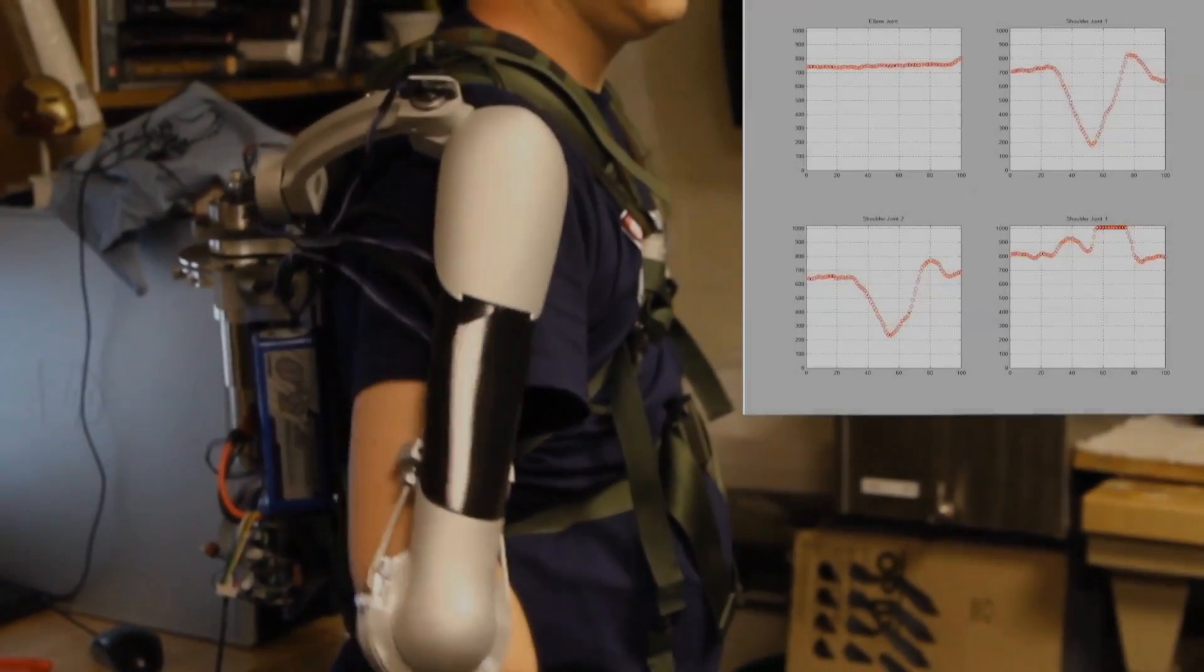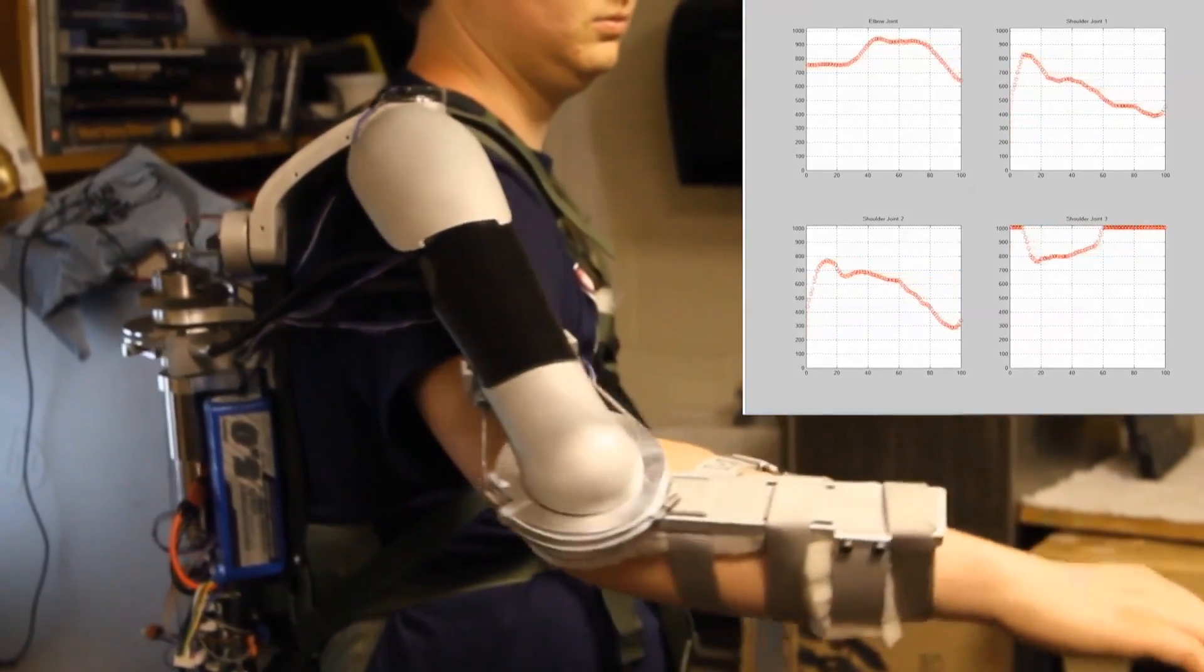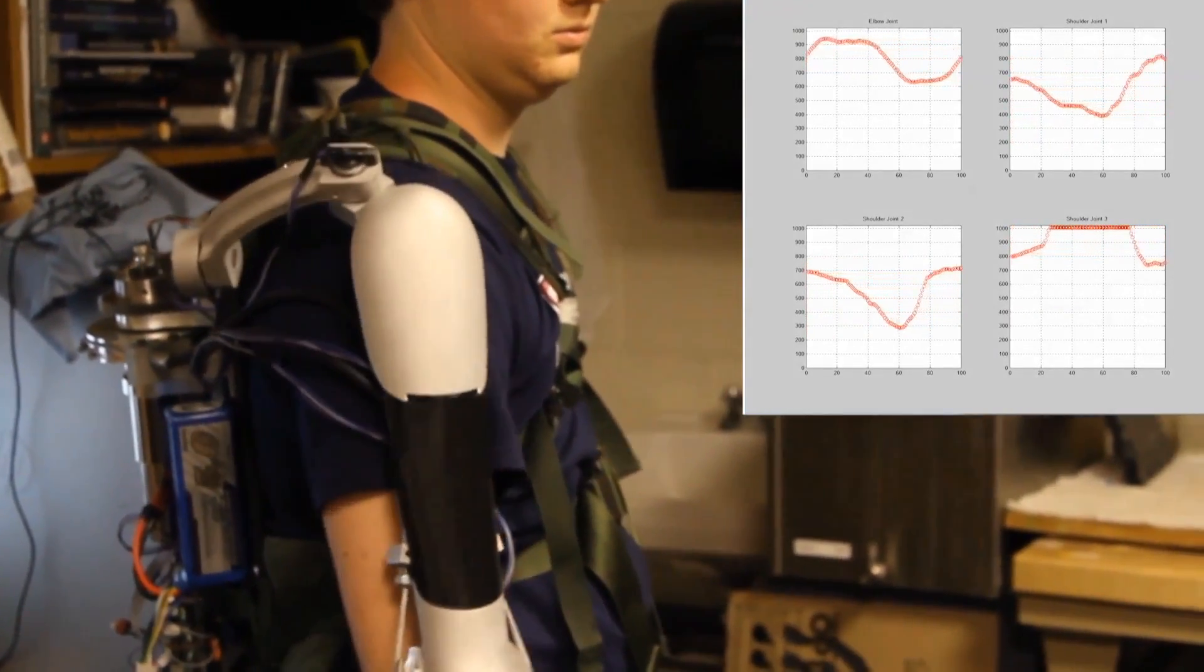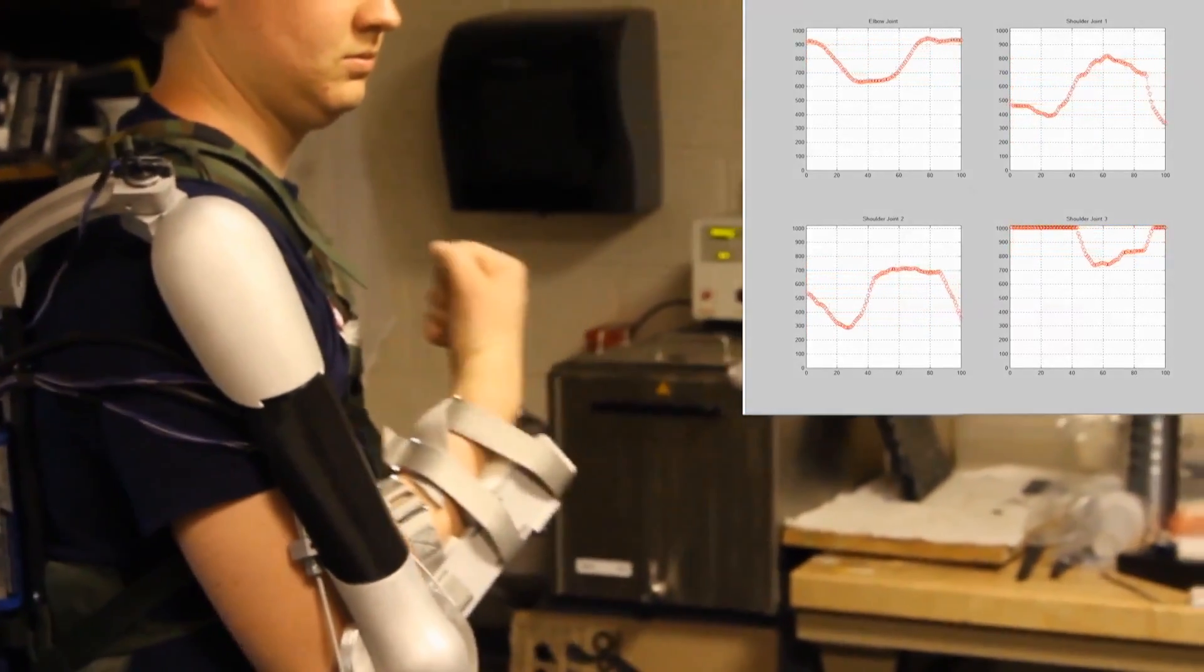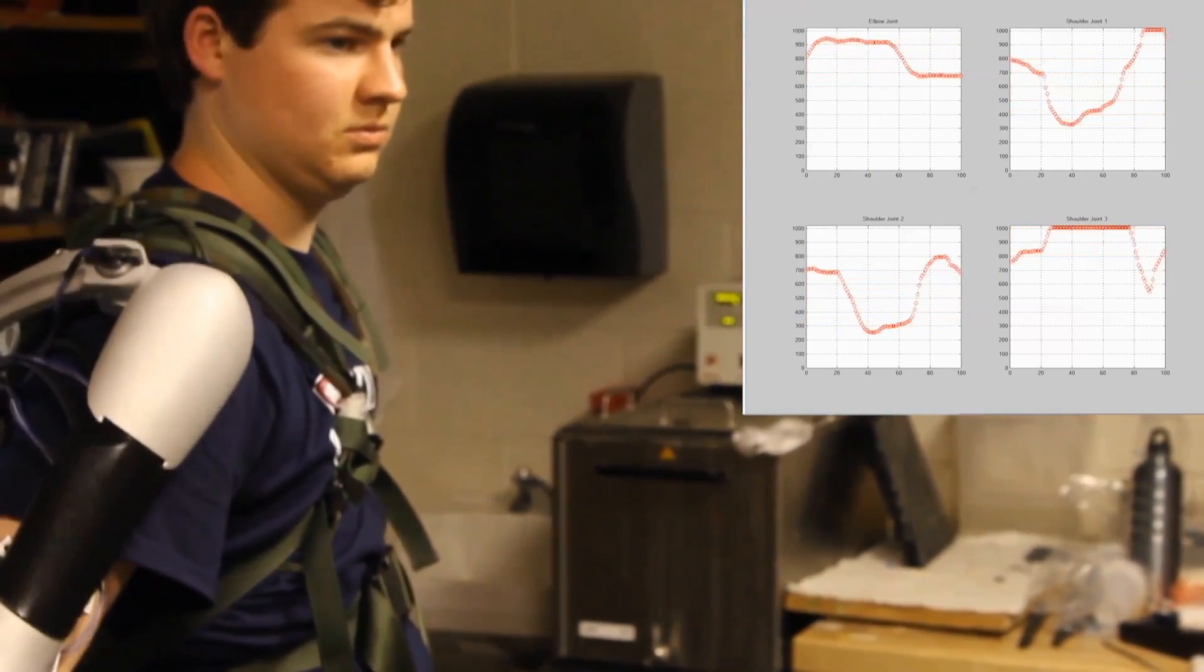Data streaming is an important part of Titan's functionality. The motion and force of the exoskeleton are continually monitored and this data is beamed wirelessly to a computer or smartphone. Using this information, doctors can make informed decisions and quantitatively show patients their improvement.